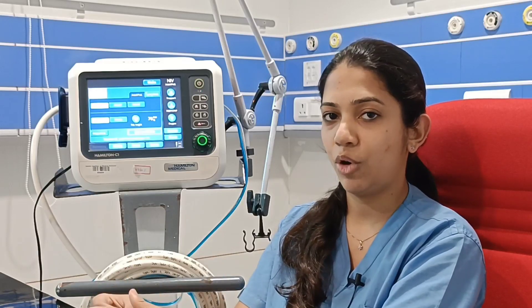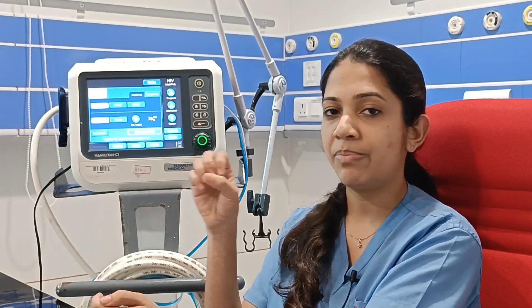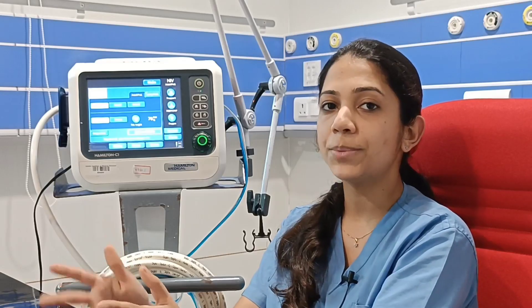Today we will discuss PCV mode, which is a pressure controlled mode. When we set a tidal volume in volume control, the ventilator will try to give maximum pressure to attain that tidal volume, which can sometimes cause volutrauma to the patient. In PCV mode, we target a pressure so that tidal volume can be achieved accordingly, without increasing pressure excessively, protecting the lung.